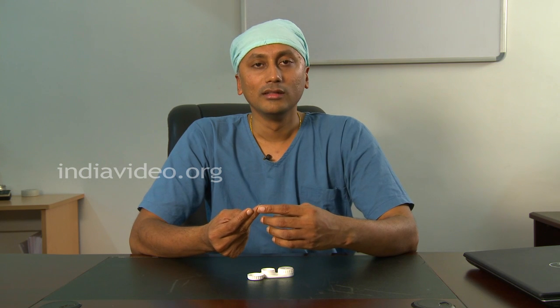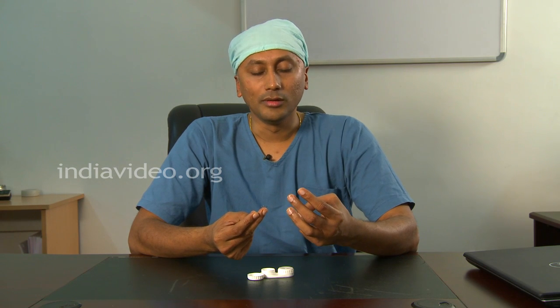The advantages of contact lenses are the wide range of power — it can be available from minus 0.25 till minus 20 and beyond, and can be custom made even beyond that. The second advantage is it is cosmetically very appealing, because a person observing you cannot make out that you have put any kind of corrective lenses. The third advantage is it is available in a wide range of colors.